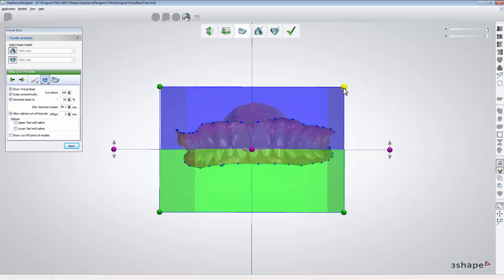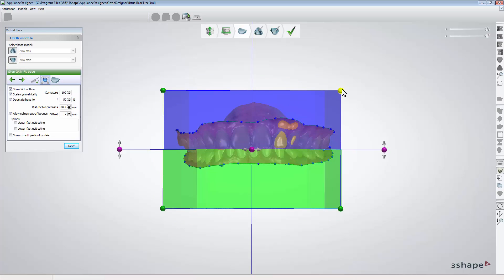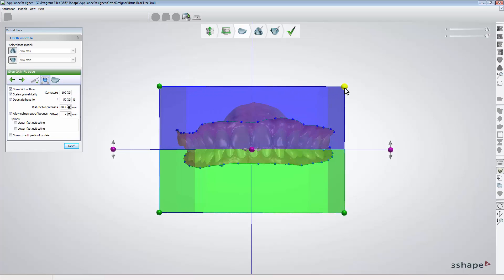If you make that area too small, the software will inform you. You need enough space to fit in all cut scans. When done, click next.